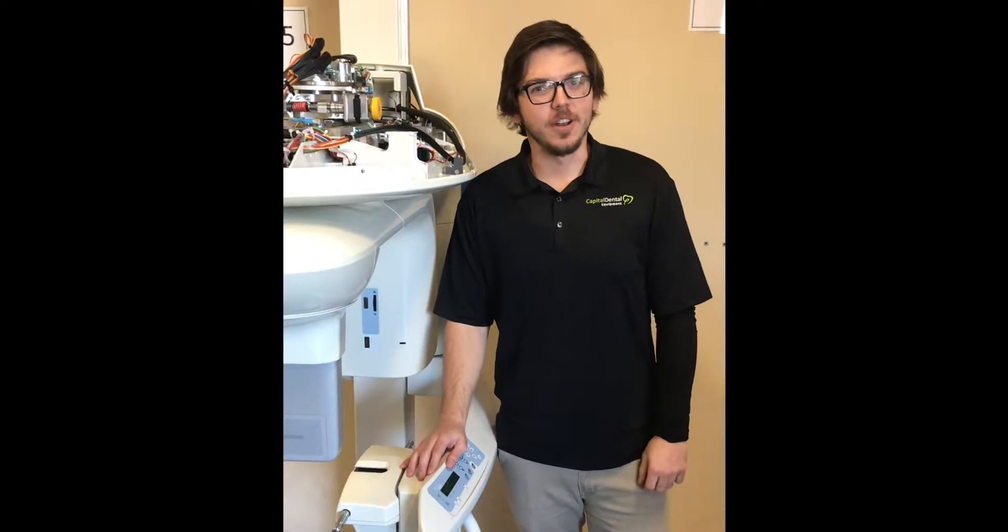Hey, I'm Eric with Capital Dental Equipment. I'm here today to show you the E40 series of errors, more specifically the E42 which is a movement error.